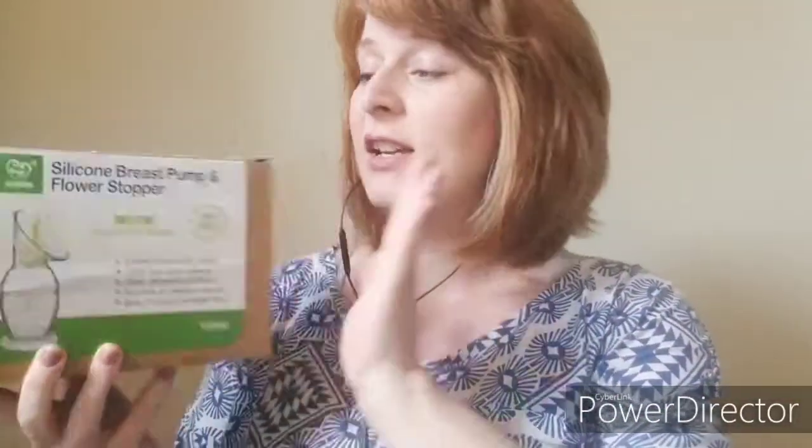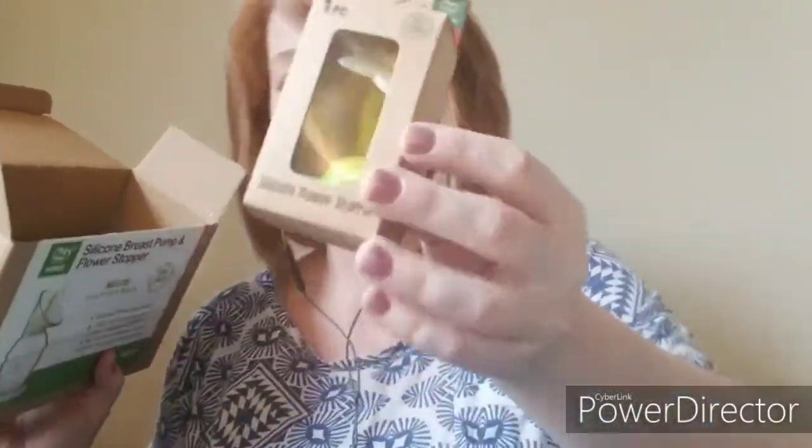I love the packaging. It came in a large box from Target. There was very little plastic packaging in that, and it was recyclable. So we open it up — look at this! Just one little plastic panel, but pretty good on the packaging overall.